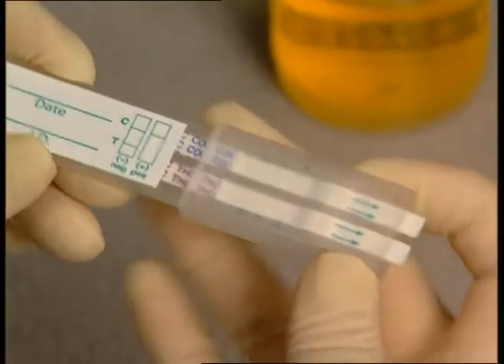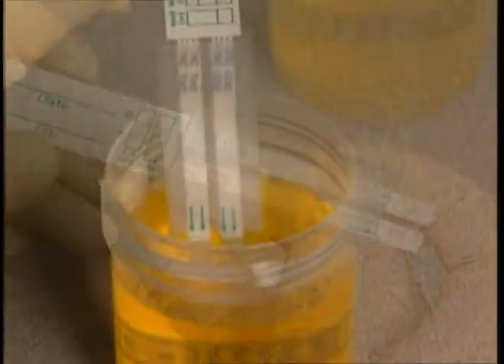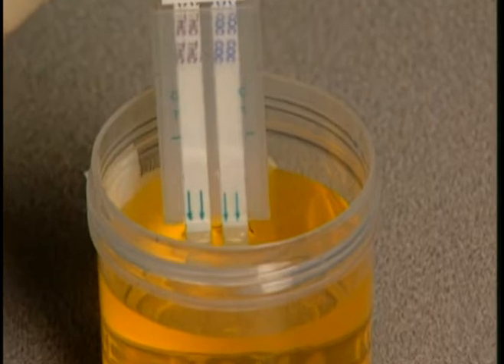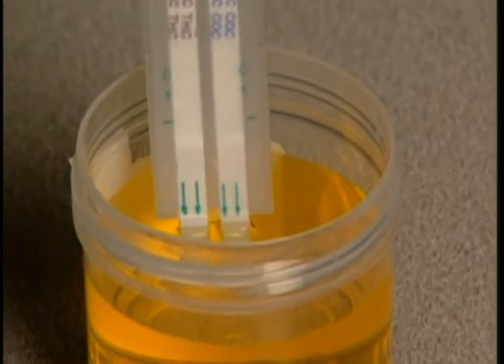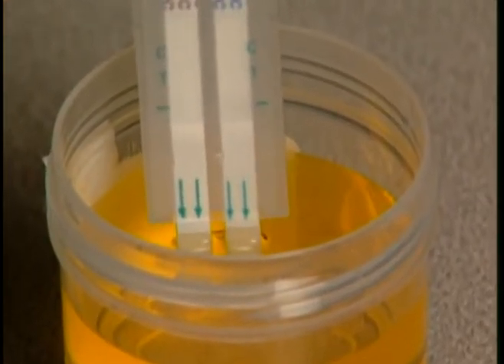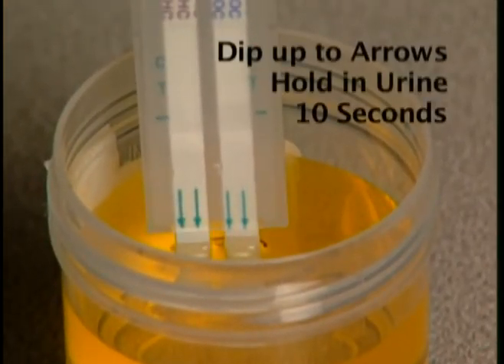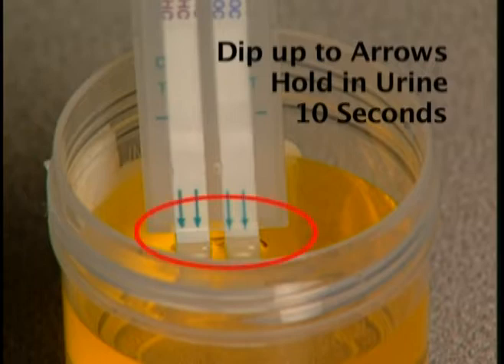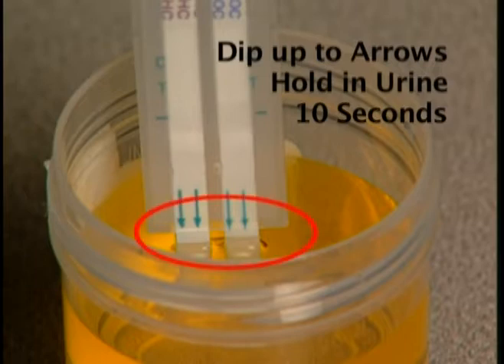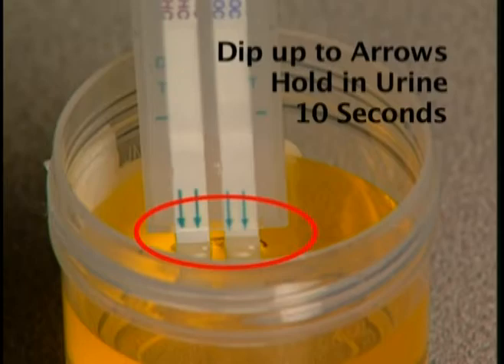Push the sleeve all the way up. Dip the sample pad of the test device into the urine specimen to the maximum dip level for at least 10 seconds. Dip up to and not beyond the tips of the arrows.